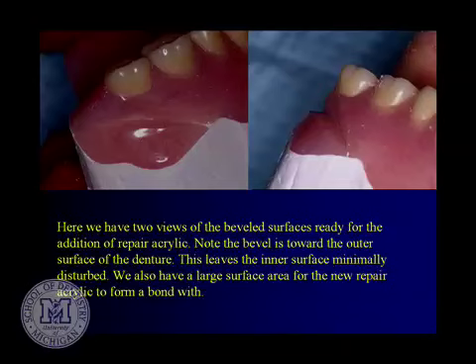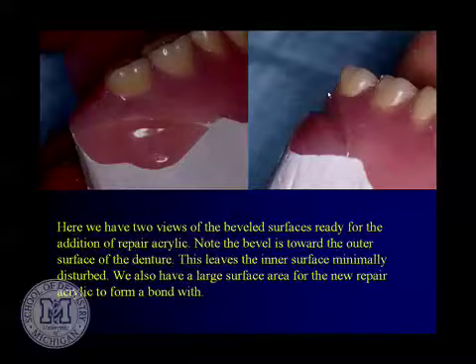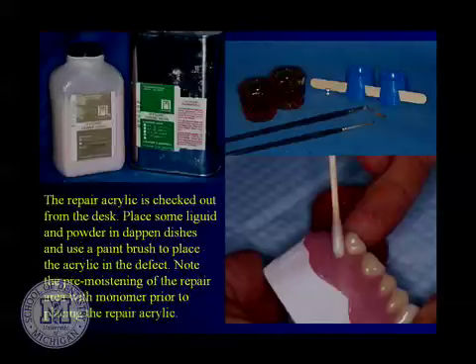With self-repair acrylic available at the dispensing desk—a self-curing pink repair acrylic—use a dappin dish of liquid and a dappin dish of powder. Moisten the fractured surfaces with some monomer on a Q-tip. Sable brushes in black wooden handles are preferred over throwaway nylon brushes because nylon brushes aren't nearly as good for picking up small increments of repair acrylic.